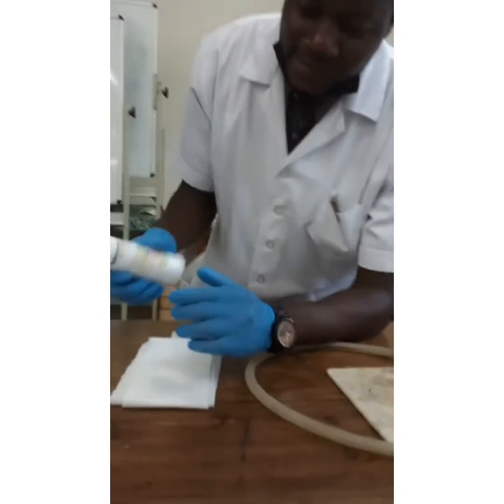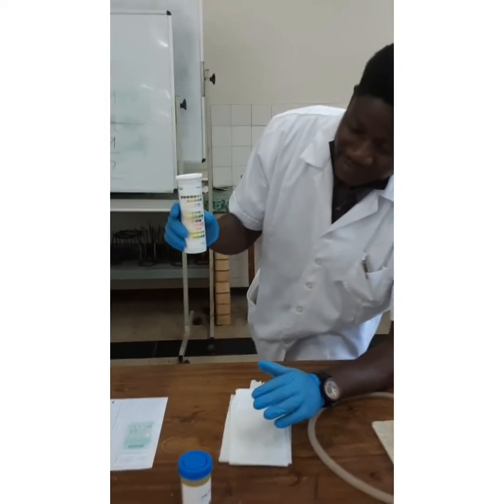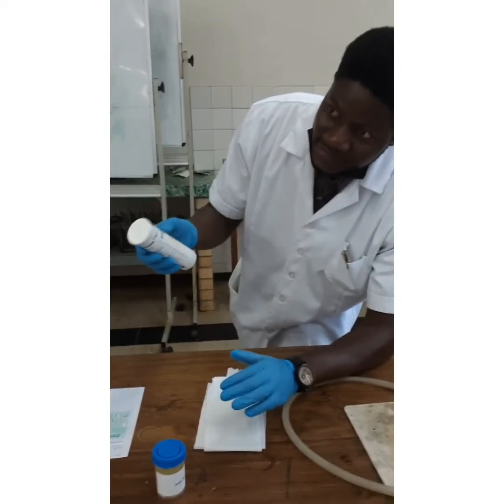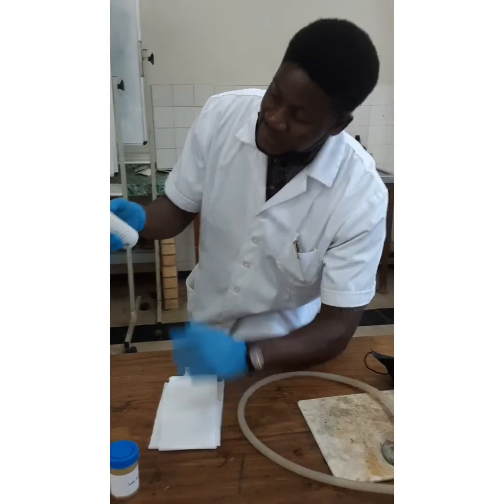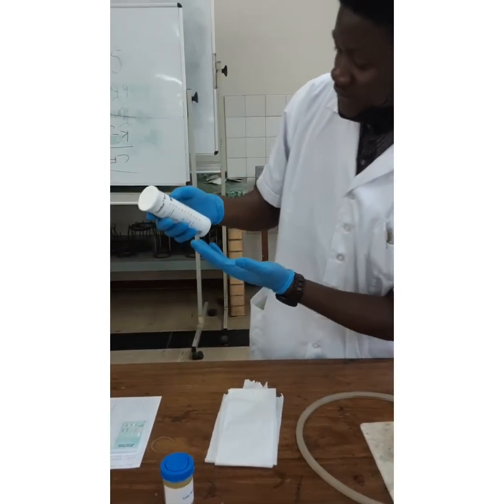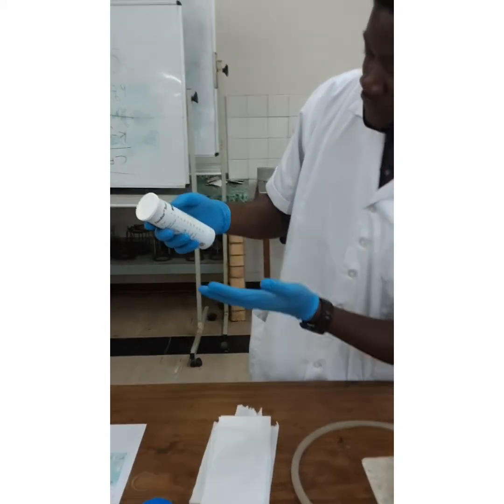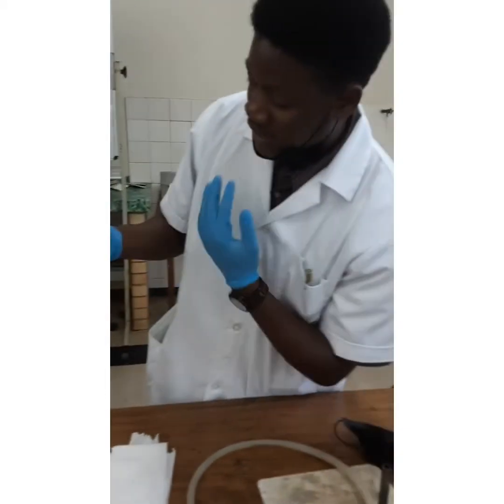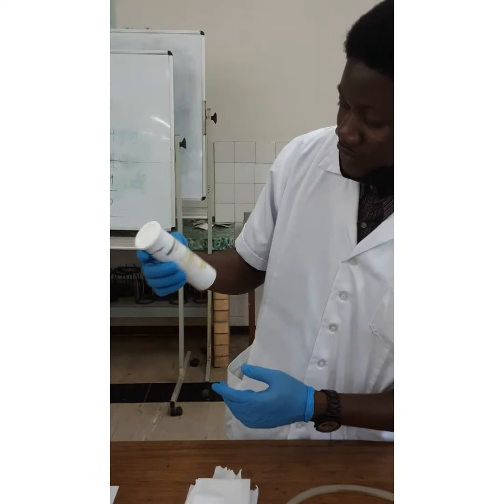So what I'm going to do is a urinalysis using a dipstick. These are just strips. Basically, what the urinalysis dipstick is here to find out — specifically: pH, leukocytes, nitrites, proteins, glucose, ketones, urobilinogen, and hemoglobin.